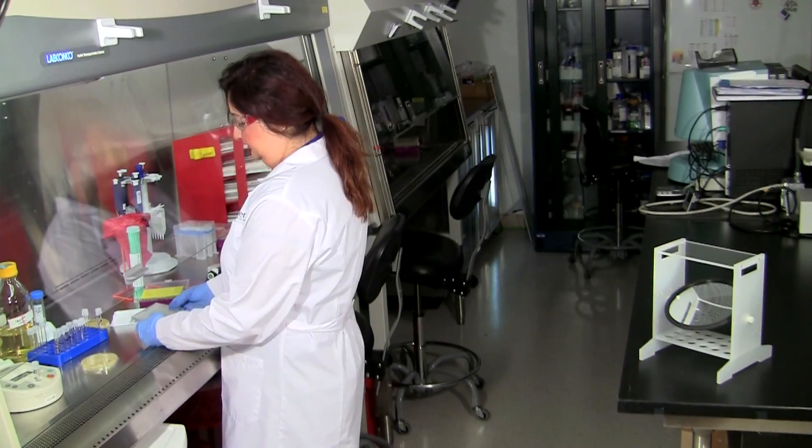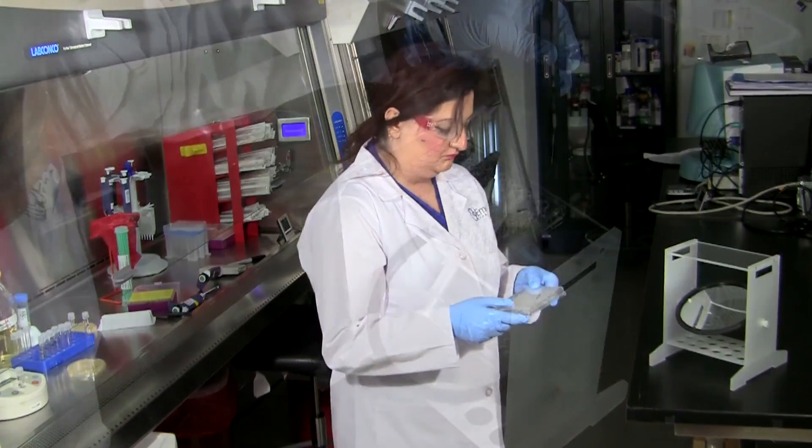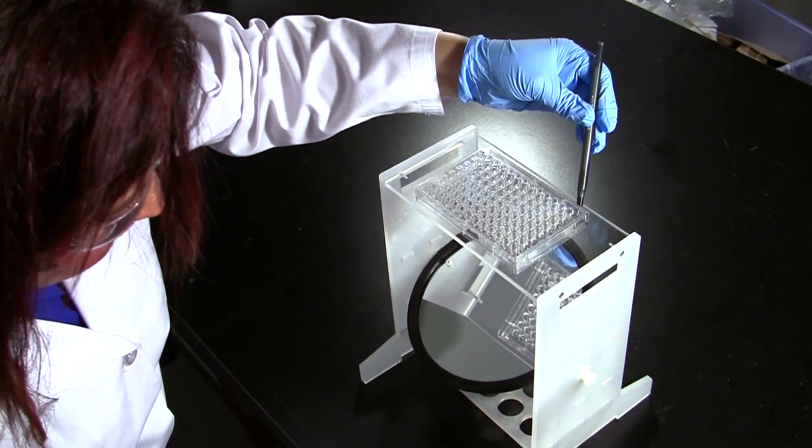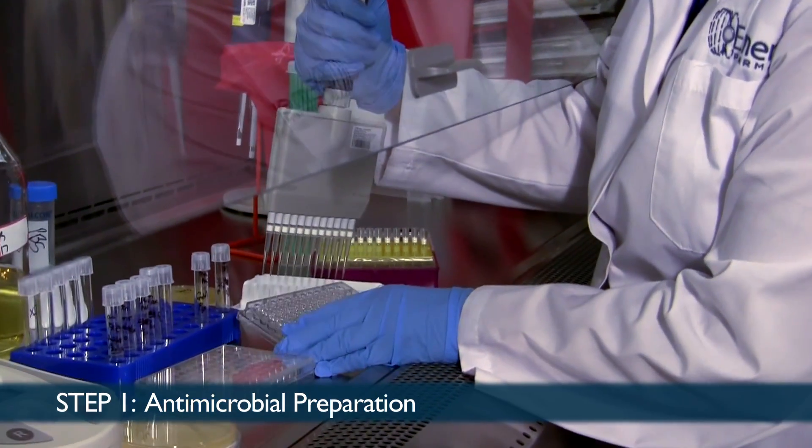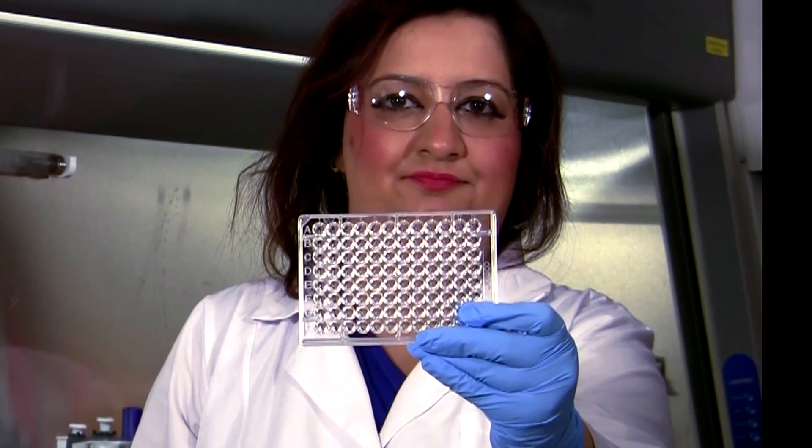MIC testing will be performed either in broth medium or agar medium. It is carried out in four steps. Step one is antimicrobial preparation. This can be done in two ways: macro dilution and micro dilution.